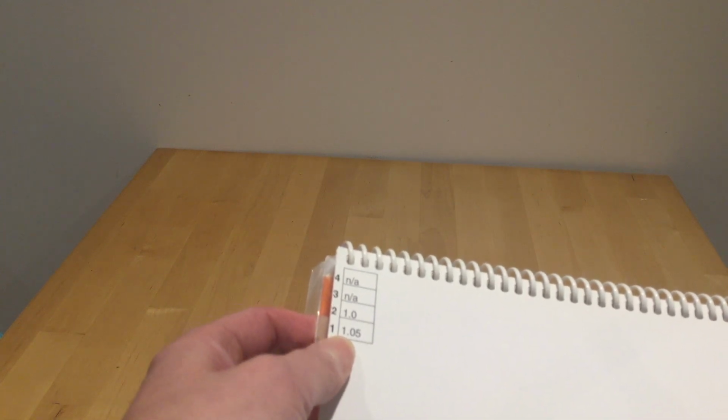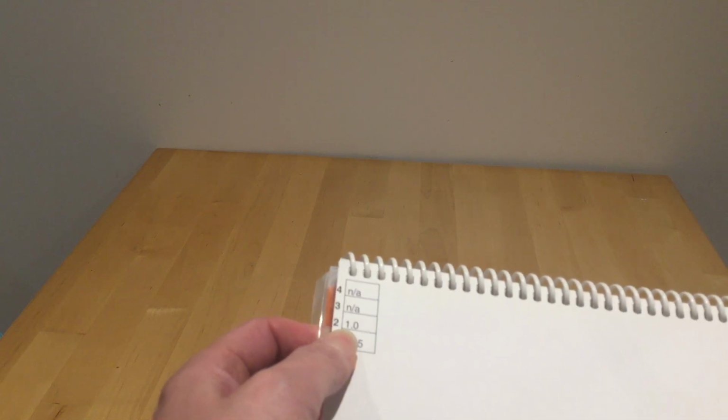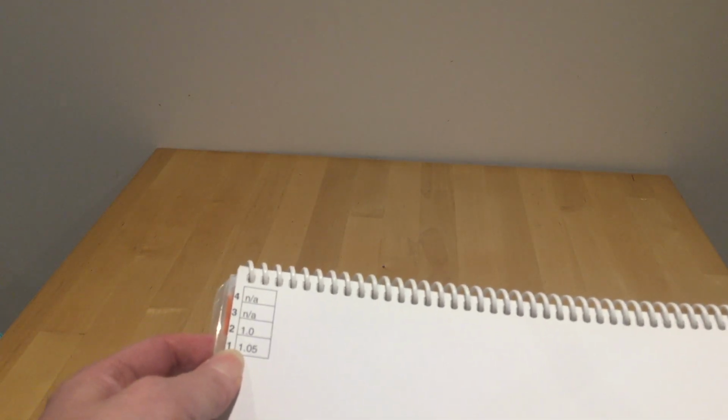Nothing up my sleeve. And if the child or young person only names or matches one correctly, then the acuity in LogMAR is 1.05. If they get 2 correct, it's 1.0. 3 and 4 are not applicable because there were only 2 pictures. All right? So remember, what is said on the page that faces you, the number that they get correct, is the acuity of the child, a distance vision.